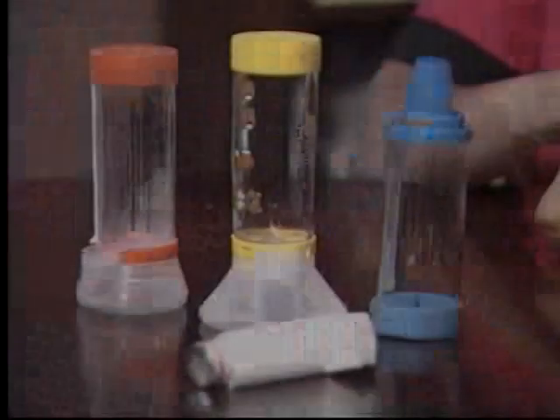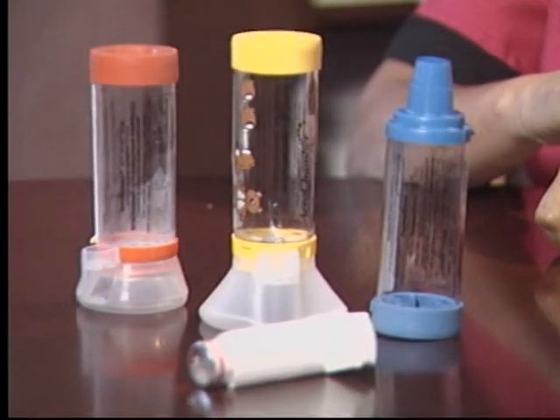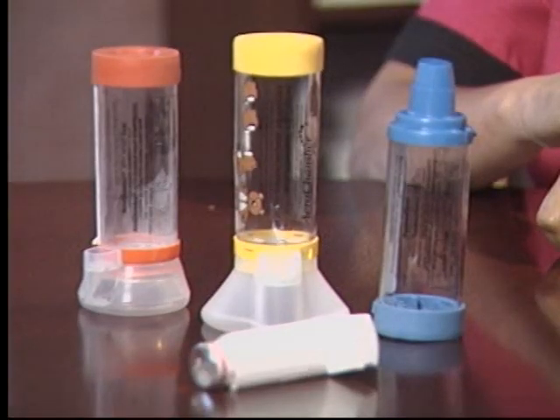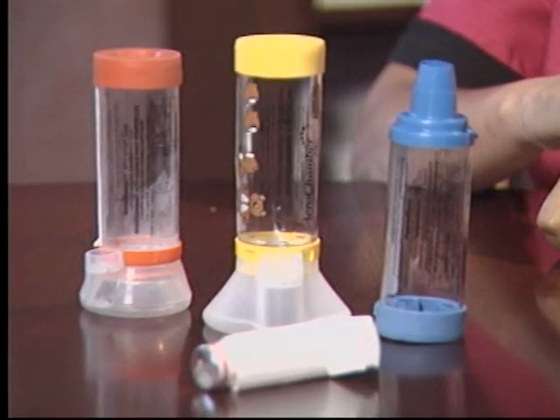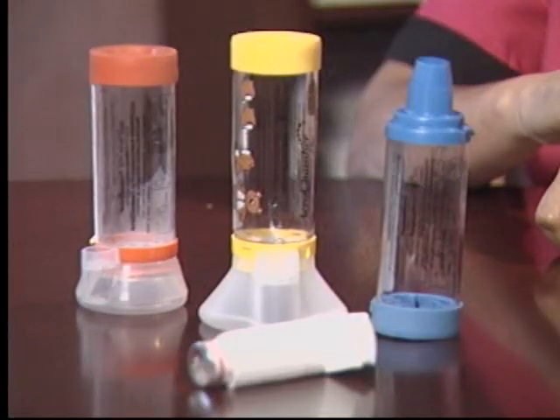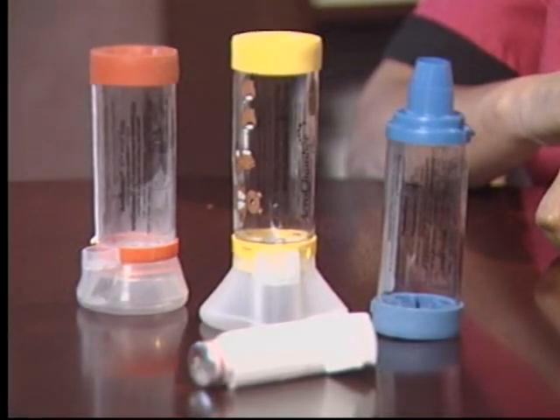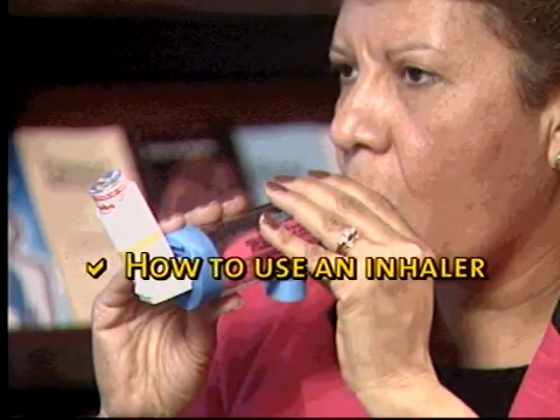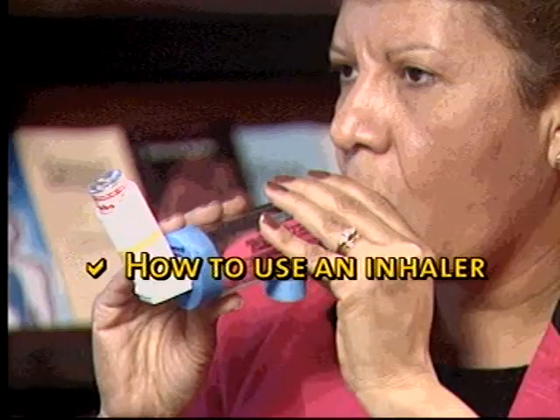Asthma is a respiratory illness which is characterized by difficulty breathing with wheezing and coughing. It is often treated with the use of an inhaler. The inhaler must be used correctly in order to properly deliver the medication to the lungs and to reduce adverse side effects. The use of an aero chamber is highly recommended. Rosario Holmes, asthma educator for the Lung Association, explains how to properly use an inhaler.